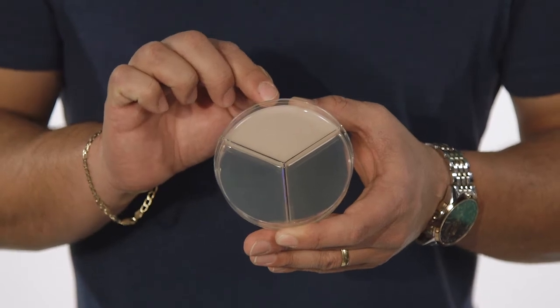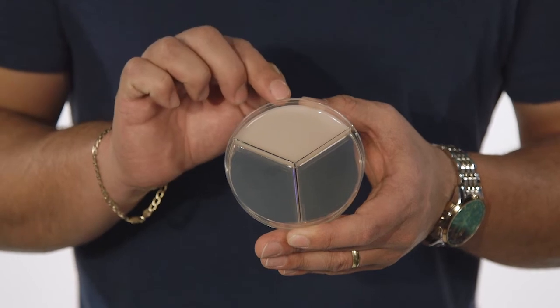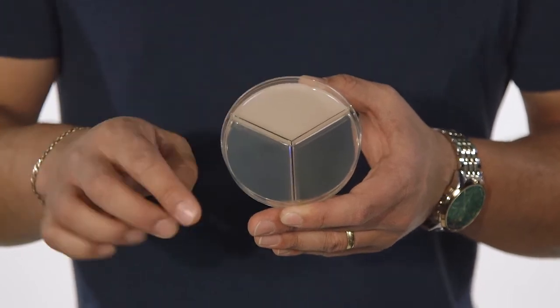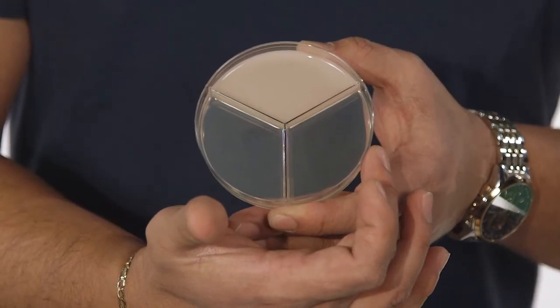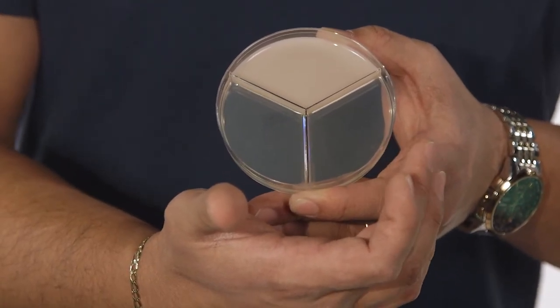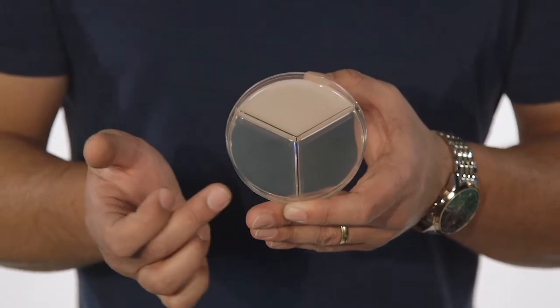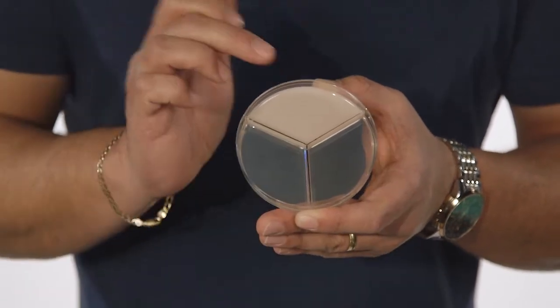This white section here is going to be your Streptococcus, Enterococcus, and Lactococcus identification section. Over here to the left is your gram-negative bacteria section. To the right is your Staphylococcus section. These are selective media — Streptococcus will only grow here and will not grow in the gram-negative or the Staphylococcus section, and vice versa.